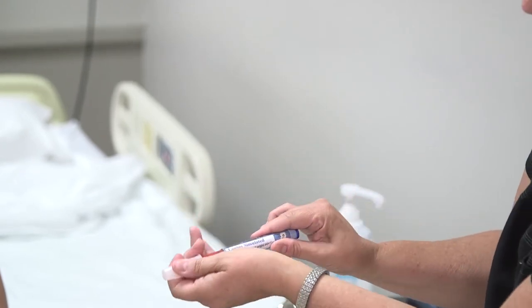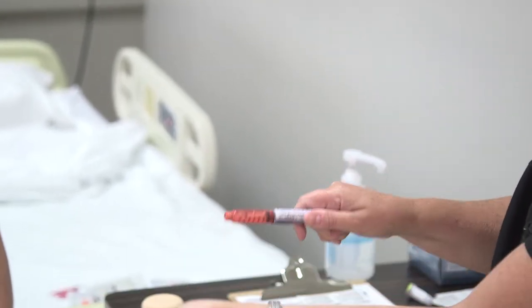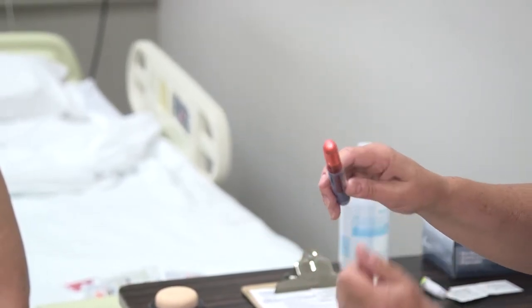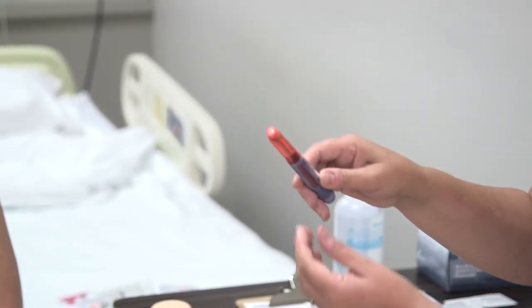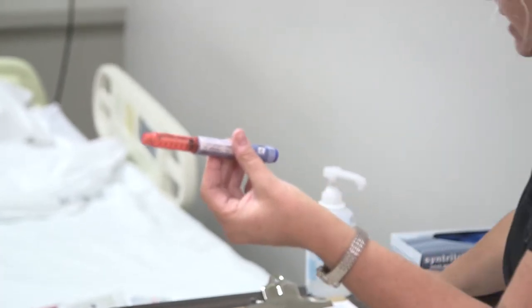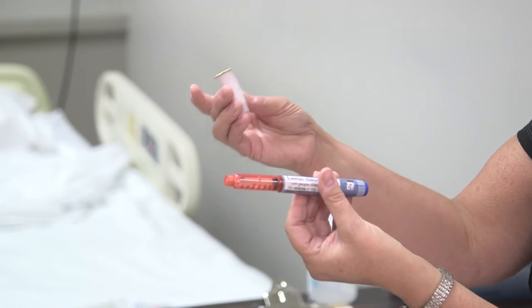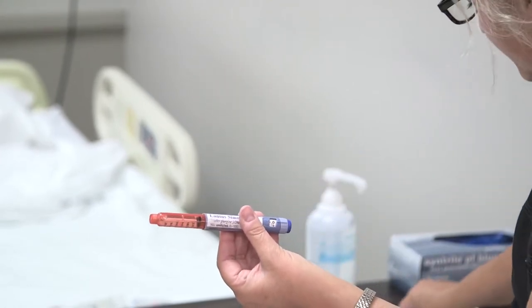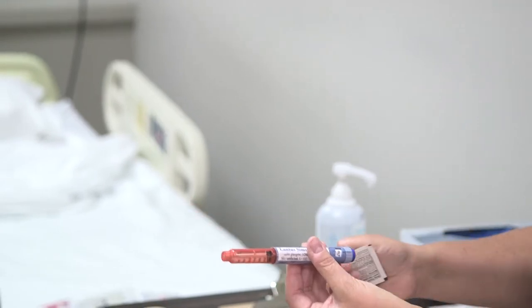The pen comes with a full cap, so you remove the cap. What you'll see is a little stopper on the top — that is where your actual needle is going to go, because we need to be able to get the insulin into the patient. This is the needle you're going to use.